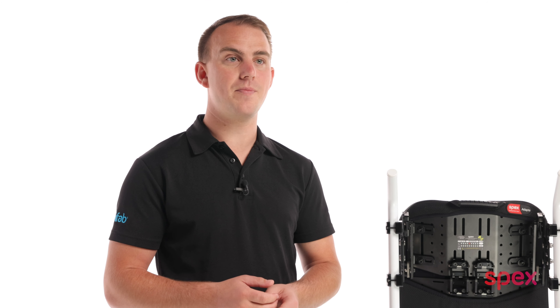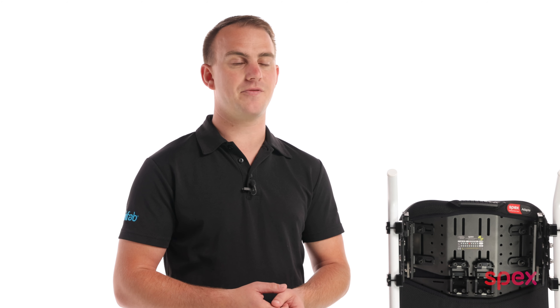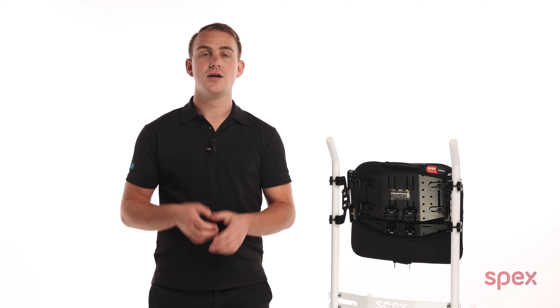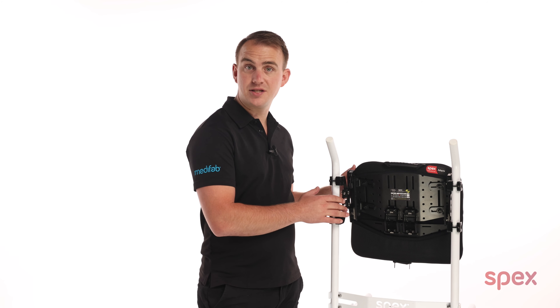I'm going to assume that you've already mounted or know how to mount the adapter to the chair, but if you'd like to know how to do this we have a separate video. So I've got the Adapta2 mounted to this chair.